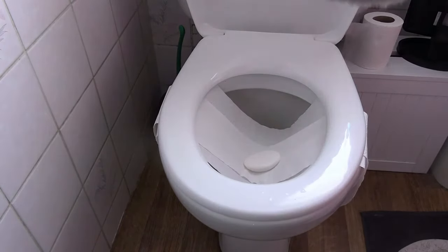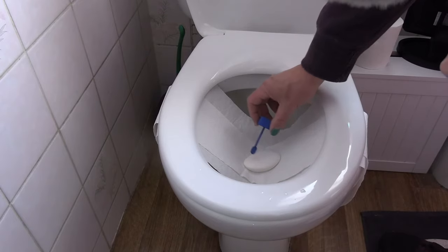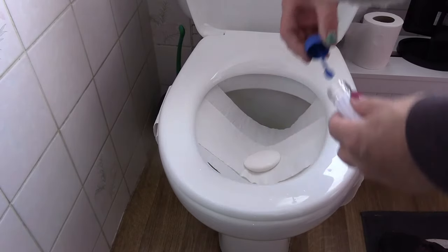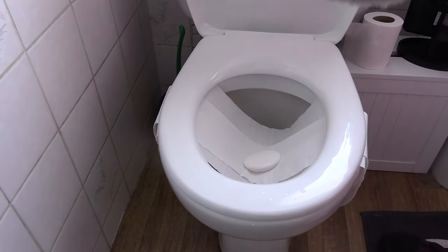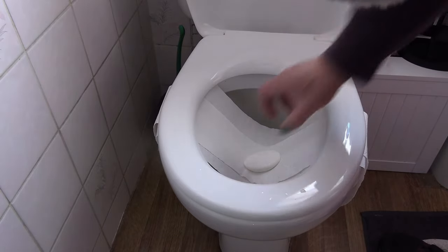Poop away. It sits there, no problem. Get your poop scoop — you don't need much — into the pot, screw it up. What do you do with the poop? It's easy. Bear in mind this is soap and you do not do this with actual poop.